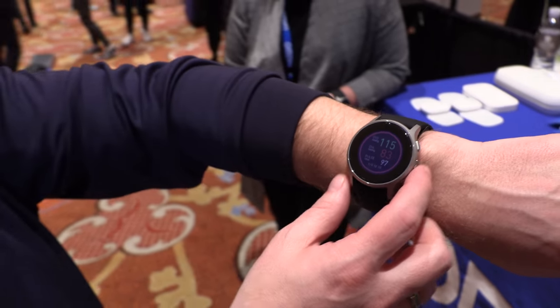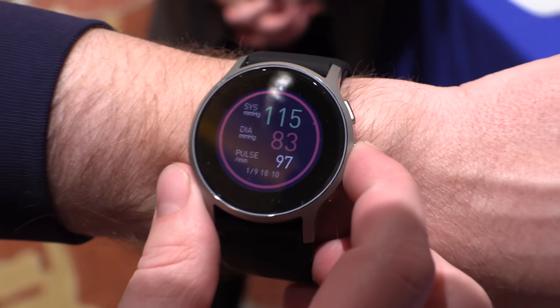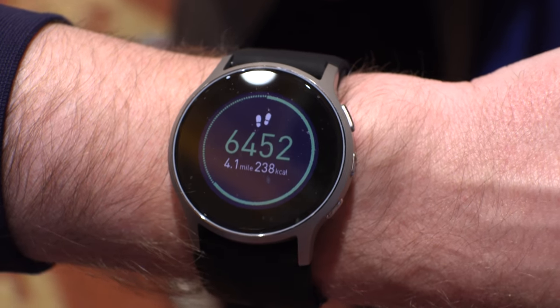Because of the sweets over there? I think maybe just because I'm talking to you — you make me nervous. It also has your pulse rate. But on top of being a blood pressure monitor, we also include activity tracking: your steps, your calories, your distance.